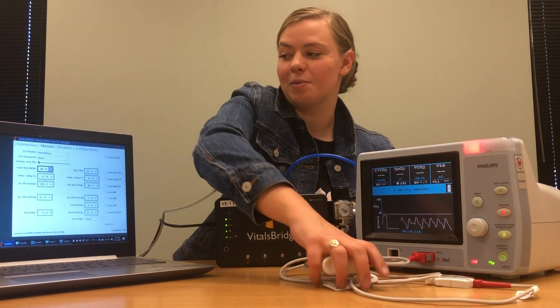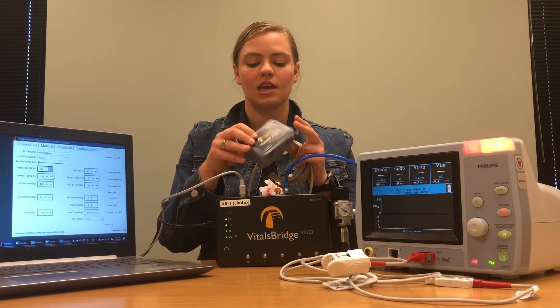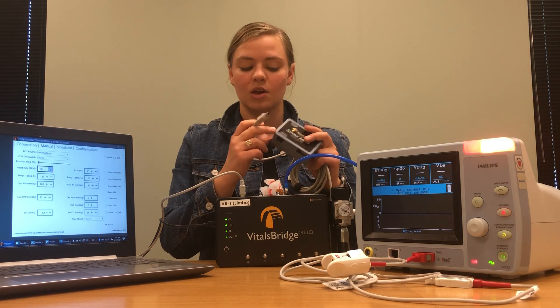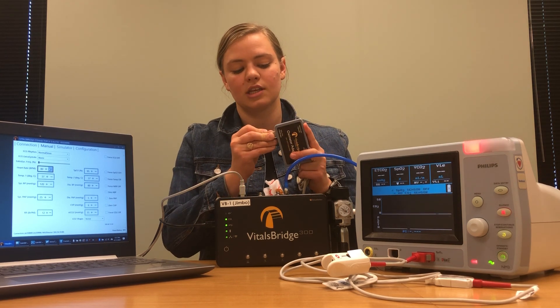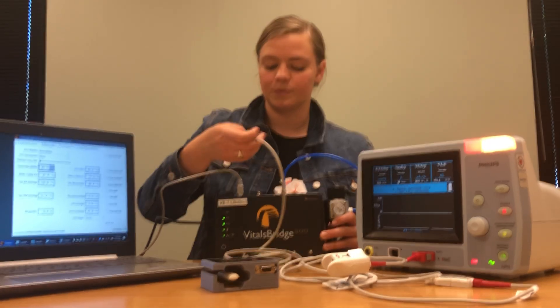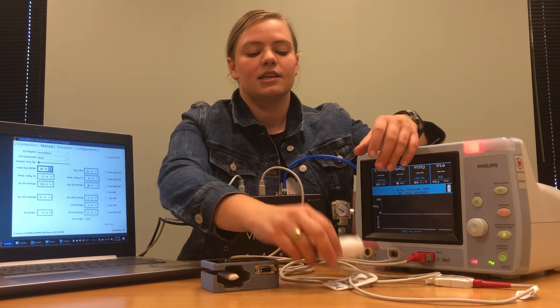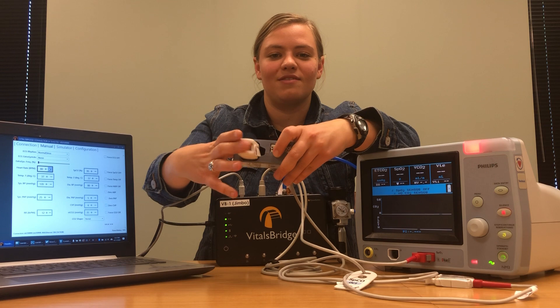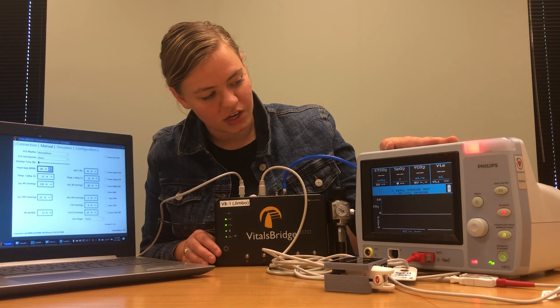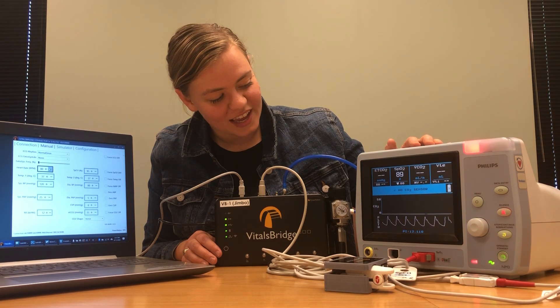So let's set this aside for just a moment and we'll pull out our oximeter adapter, which came with the VitalsBridge. The oximeter adapter is a small gray box and a cable that has two matching ends. Take one end of the cable and plug it into the oximeter box where it says SpO2 port VitalsBridge. Then take the other end and plug it into your VitalsBridge unit where it says SpO2. Once you have that plugged in, take the SpO2 probe and place it on this white finger here. After a minute, it will initialize on your patient monitor and you should see the SpO2 reading, the pulse rate, and the waveform. Everything is working awesome.